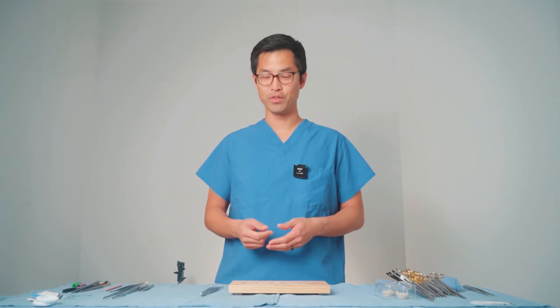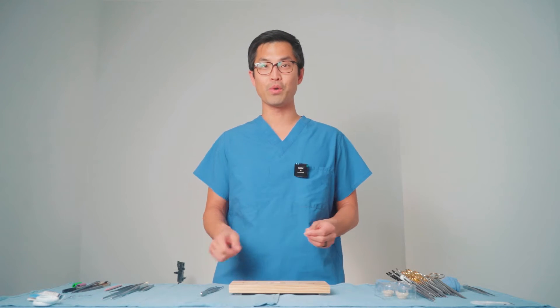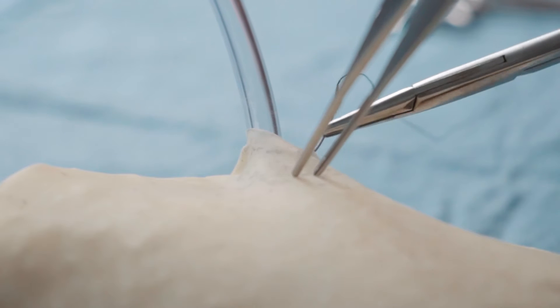Right now in surgery there's no good way of practicing your hand dexterity using forceps. The first time you go into the OR you're gonna hold them in your hands and have to pick up very fine tissue, and you don't want it to feel foreign in your hands.